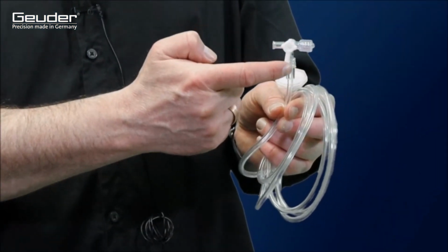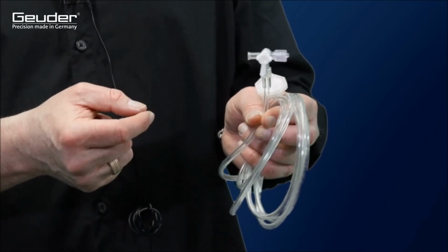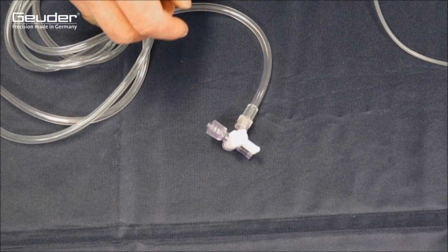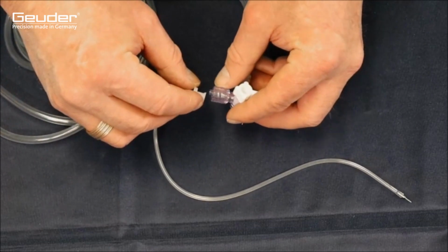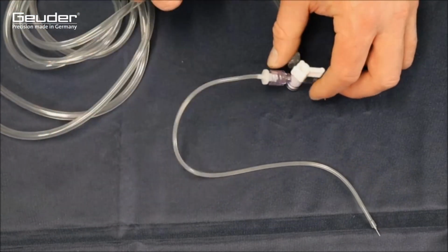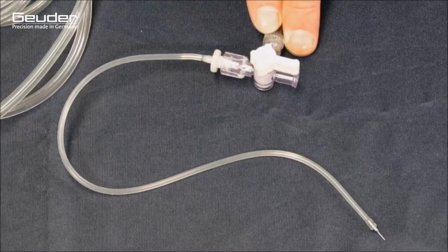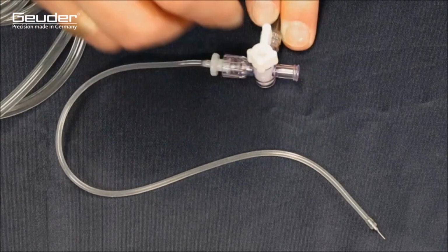The long leg of the three-way valve is marked off and thus shows which supply line is currently closed. Depending on the position of the limb, either saline solution or filtered air is infused into the eye. After the trocars have been inserted, the injection holder included in the set must be connected to the three-way valve using a luer lock. Here, the correct setting of the three-way valve must be observed in order to ensure the delivery of the required medium.